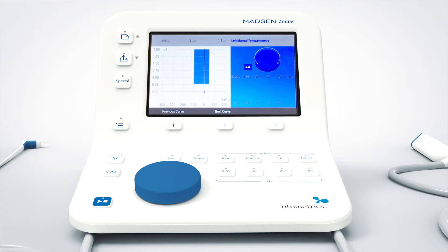Now I can see that the screen has changed. The diagram explains how to use it. We have the play button here and the wheel here. I vary the pressure by turning the wheel to positive, negative, or vice versa.